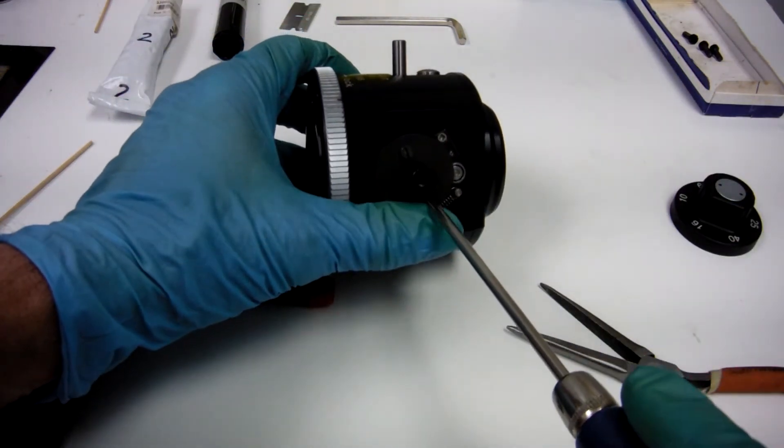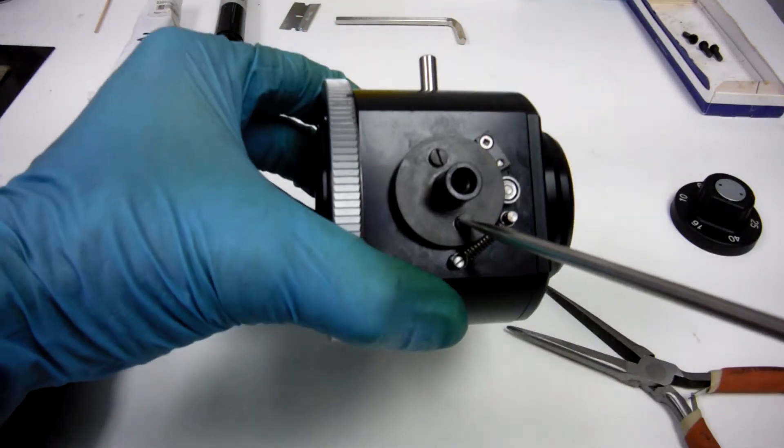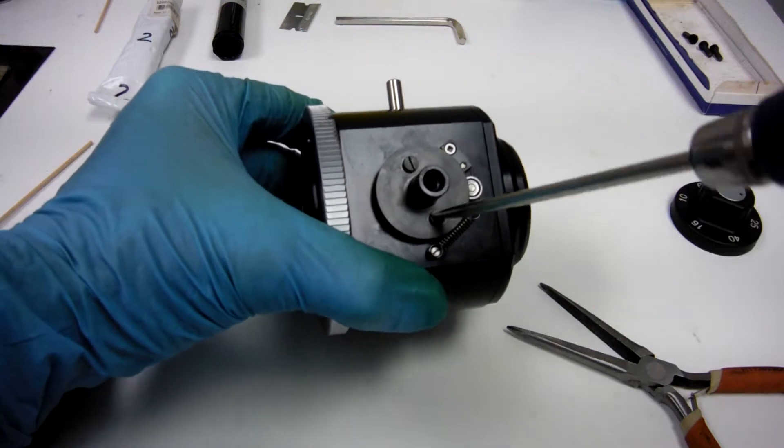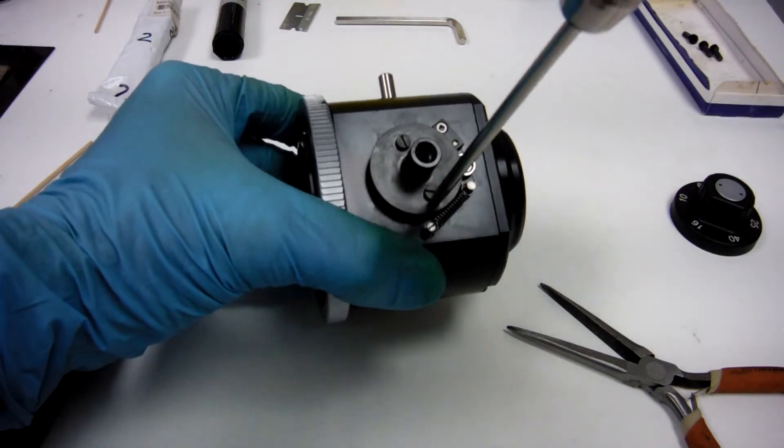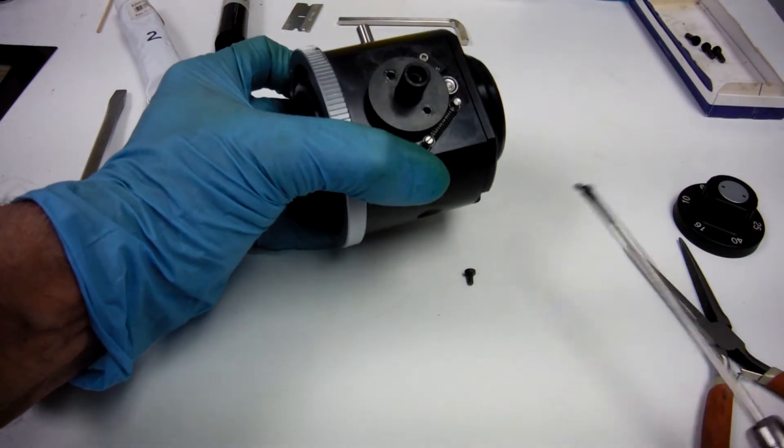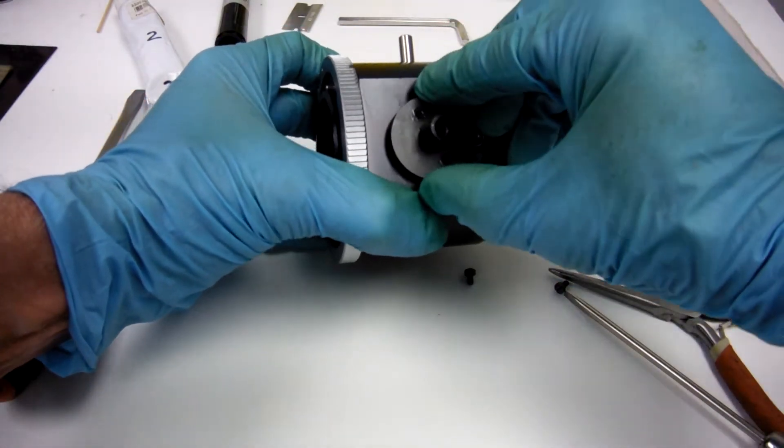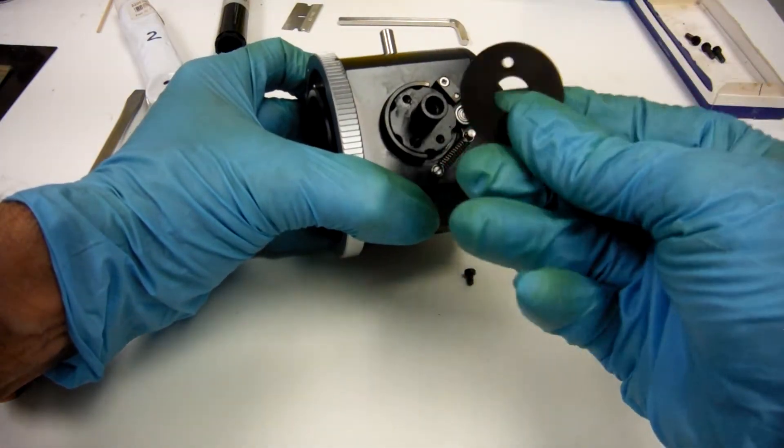We're going to take off these two screws. Can you see that? Yeah, we're going to take those two off. Then we'll take off this washer.